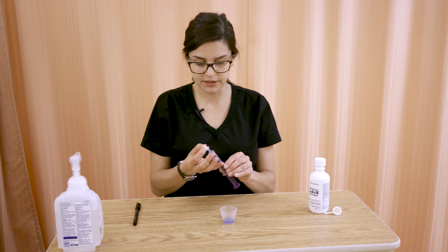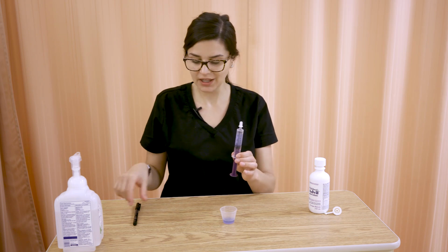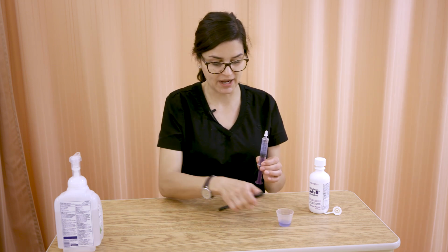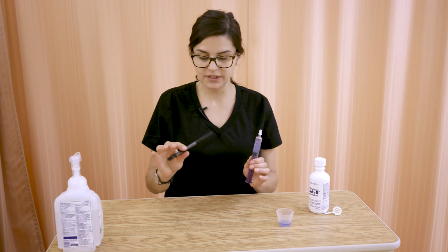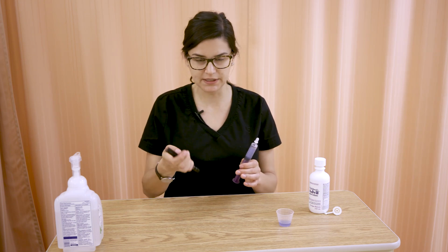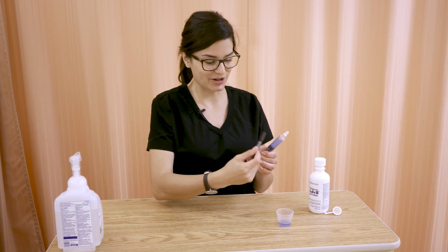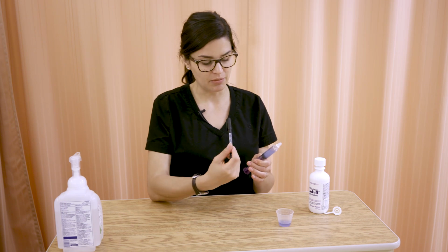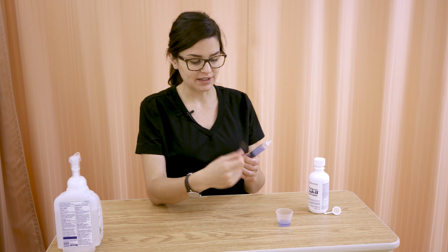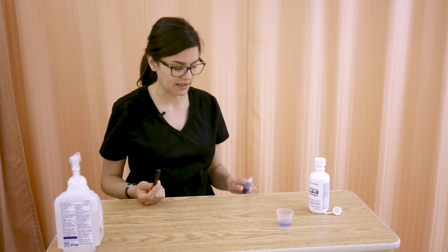So at this point, I'd like you to recap your syringe. That's mostly just for cleanliness purposes, because when you start flicking, it can spray everywhere if it's not recapped. So using the heavier part of a pen, generally the side with the cap on it, we're going to actually whack really hard, harder than you might think, right on that bubble. That takes a little bit of practice to get used to that dexterity of where to hit. You will also see people hit on the side of the table.